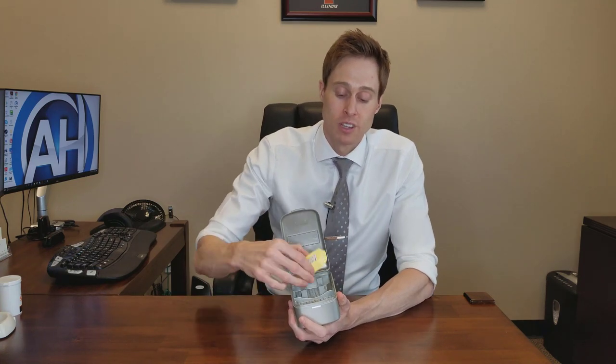You wake up in the morning, open the tray, and have bone-dry devices that have had air completely circulated through the whole unit — ready to go. The pros are obviously that you have more forms of moisture control happening. Having a device that actually circulates air to pull more moisture out is highly effective. It still uses silica beads, which is a great feature, and these last two months apiece. It will do a really good job compared to the other types at removing moisture from your devices. That said, a few cons: you need to plug it into a wall, which isn't always convenient, and traveling with it is less convenient because it's a larger unit. You also have to get new dry bricks every two months — you can't recharge them in the microwave.